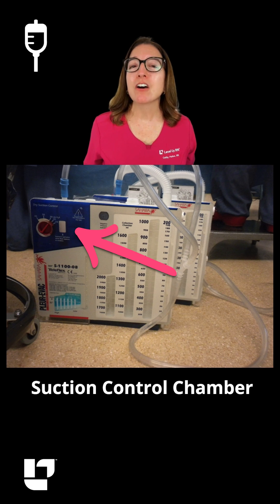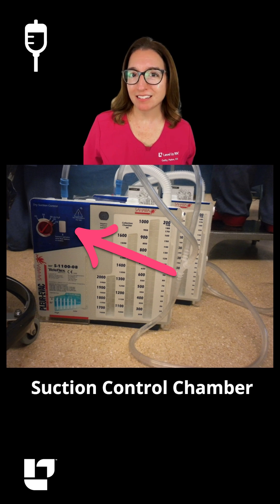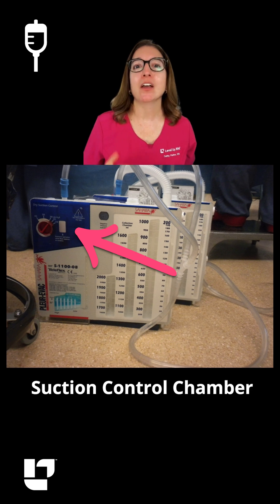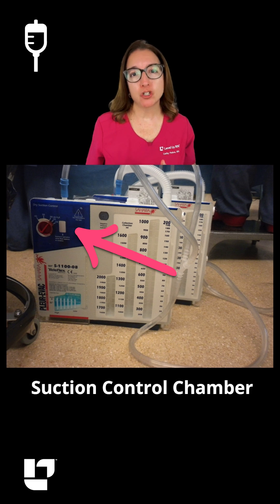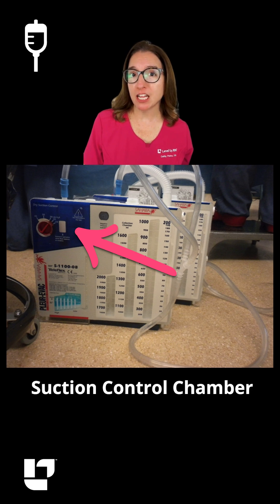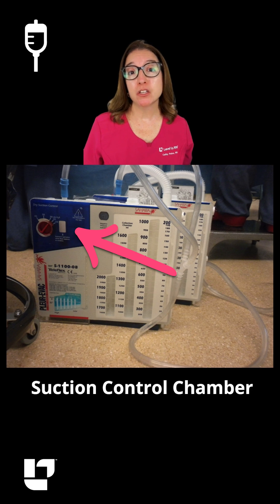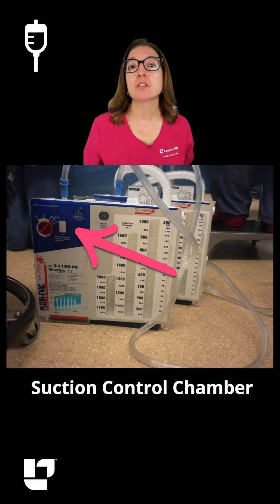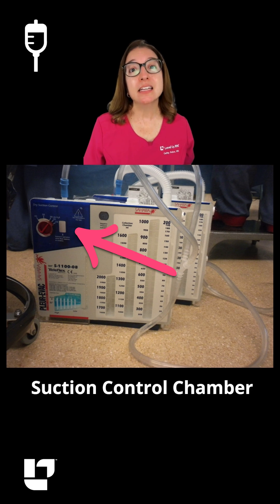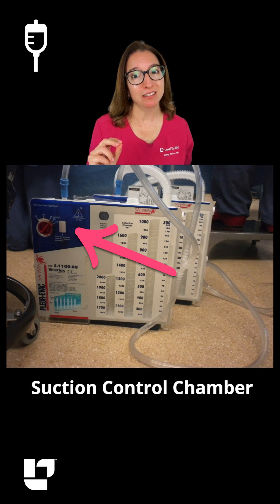And then finally, we have our suction control chamber. There are two types of suctioning: wet and dry. In this image, we have dry suctioning. However, if your patient has a unit that uses wet suctioning, then continuous bubbling is expected in this chamber.